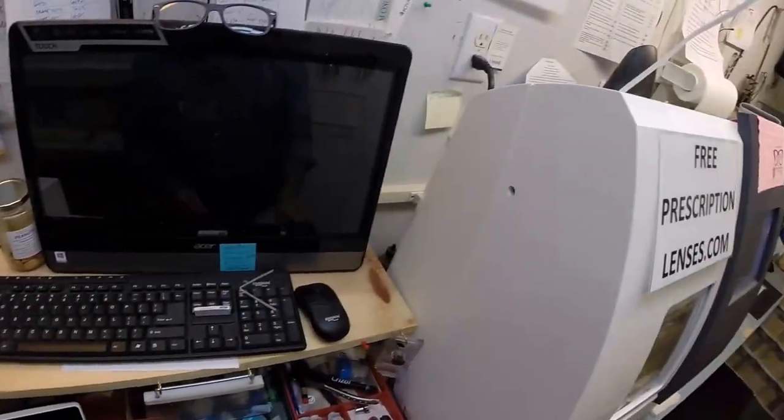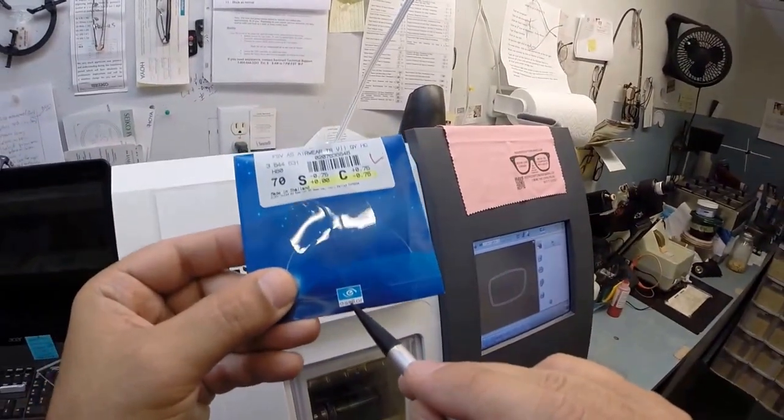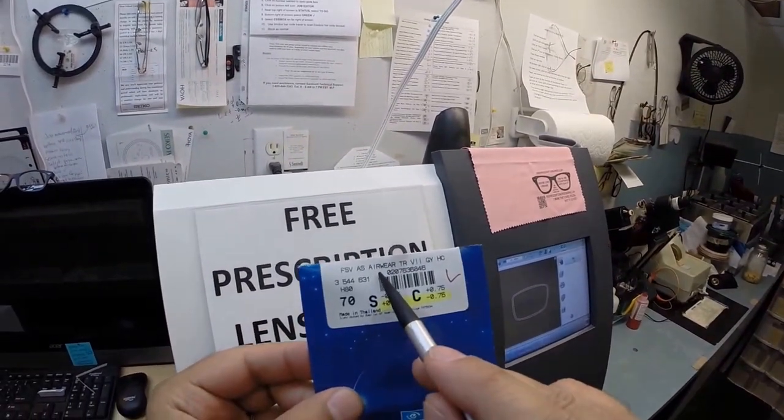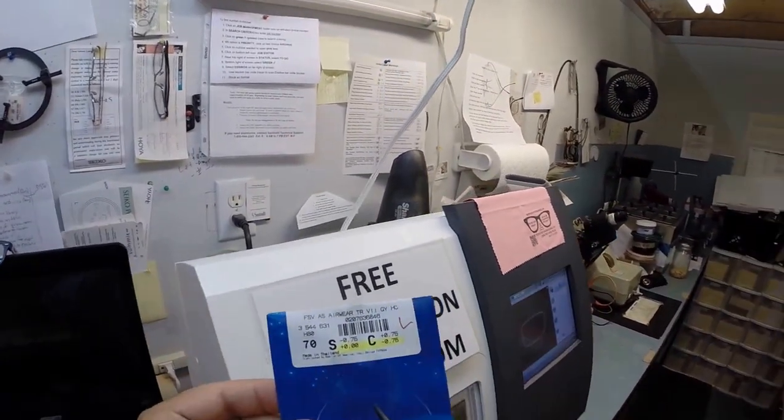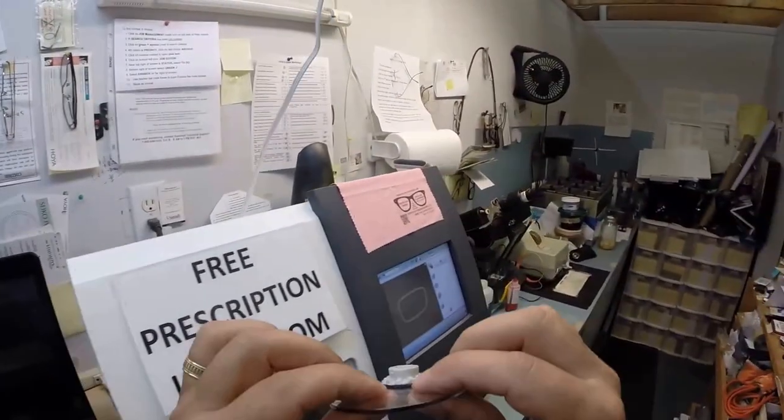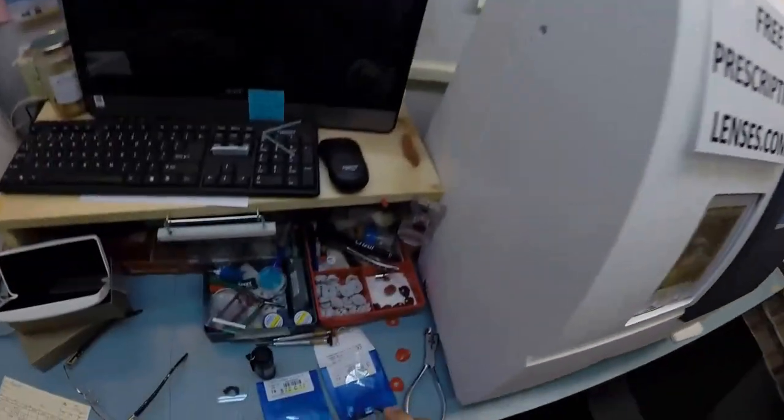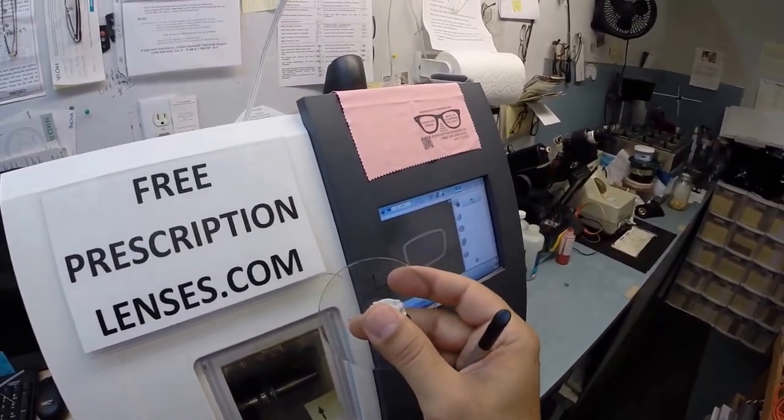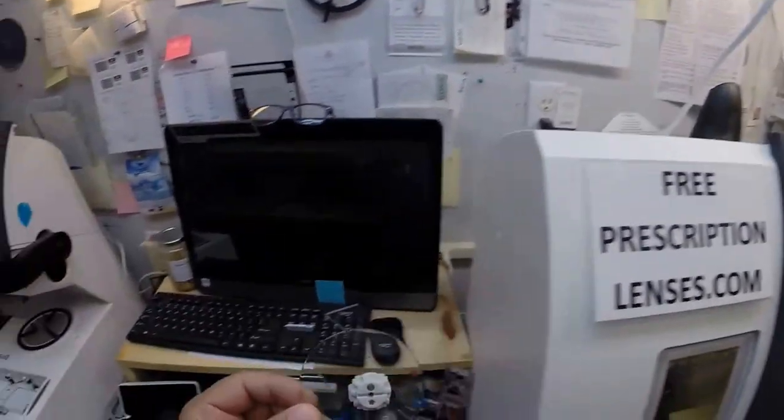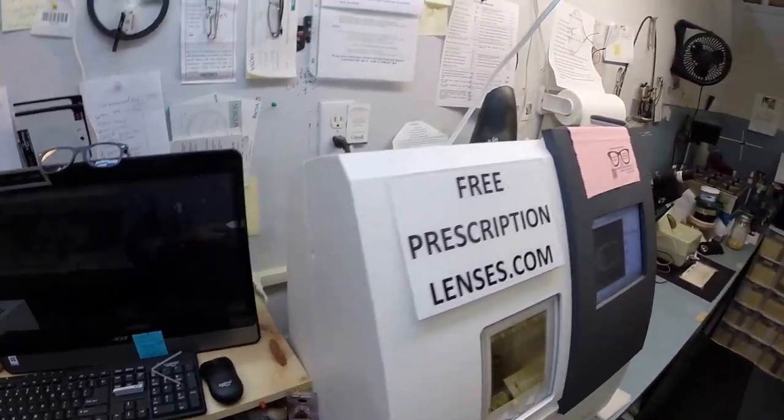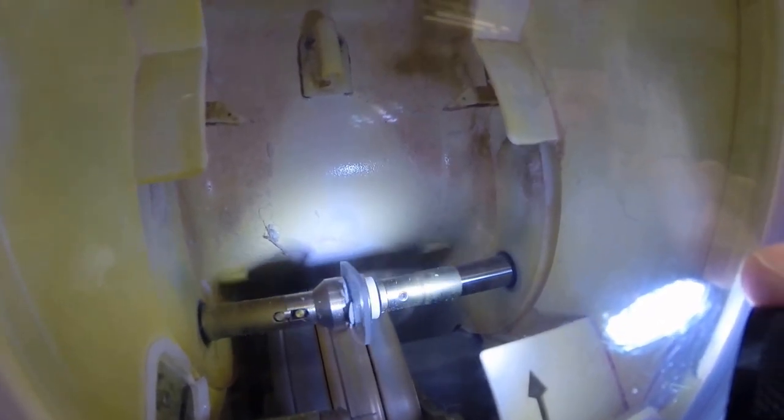It is going to place it right there to have the best fit possible. If you see light flickering in the background, that is water running. It is only there to catch the optical sawdust coming off the back of the lens or the back of the cutting wheel. In just a moment you will see your lens as it touches down onto the cutting wheel. Your lenses are made out of polycarbonate. Well, your lenses are the Essilor brand of lenses. Essilor calls polycarbonate airwear because it feels that it's as light as air. These are polycarbonate, 40% thinner and lighter than regular plastic. It is virtually unbreakable. Your lenses are bulletproof up to 22 caliber, which is important in Los Angeles on the freeways.